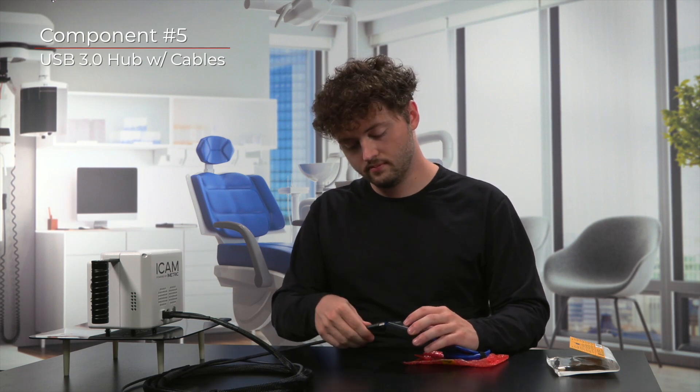Next, let's grab the USB cable bundle itself. There will be a lone USB-A connector that will then be inserted into the hub, into any of the four ports. This is the USB connector that you see on most phone cables.